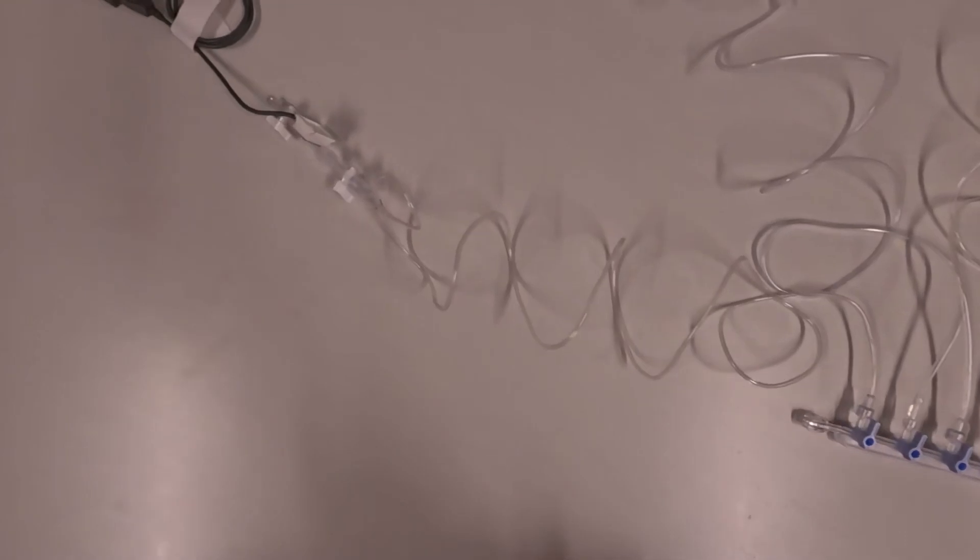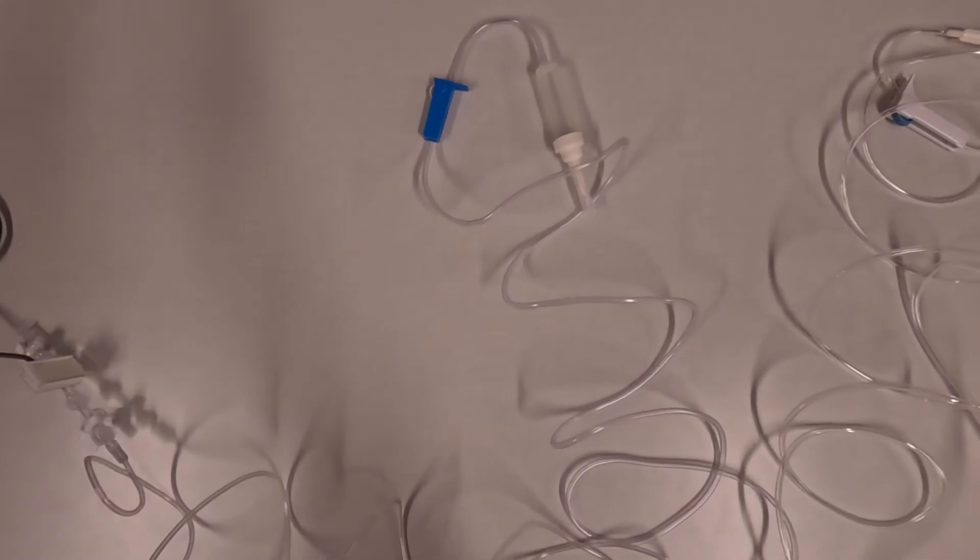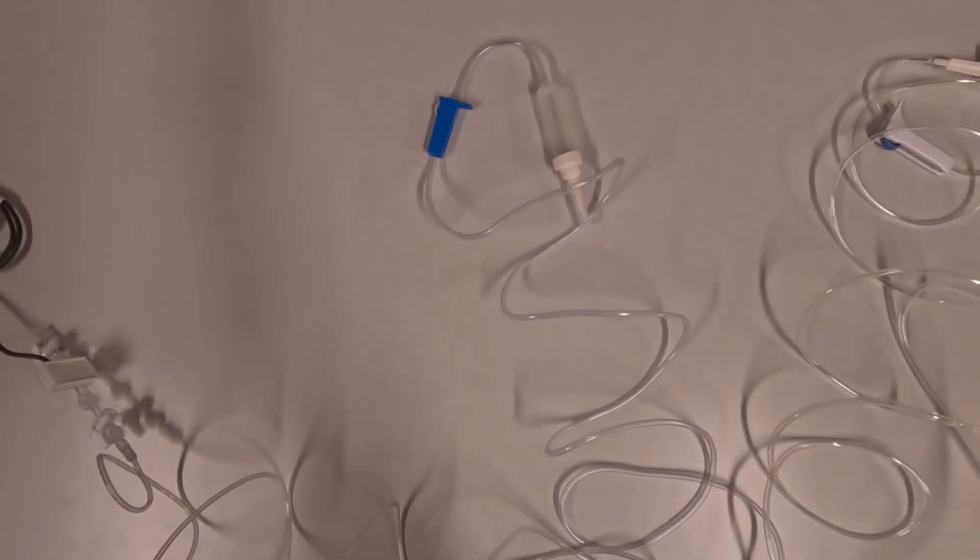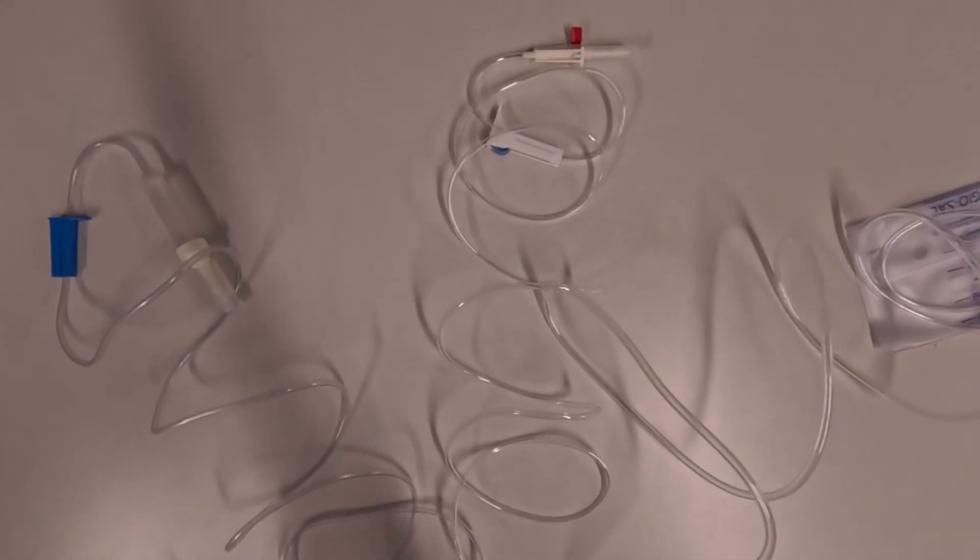You can see the first port connects to the pressure line. The second port connects to your fluid, which is usually heparinized saline. The third port connects to your contrast, and the fourth port connects to your waste bag.